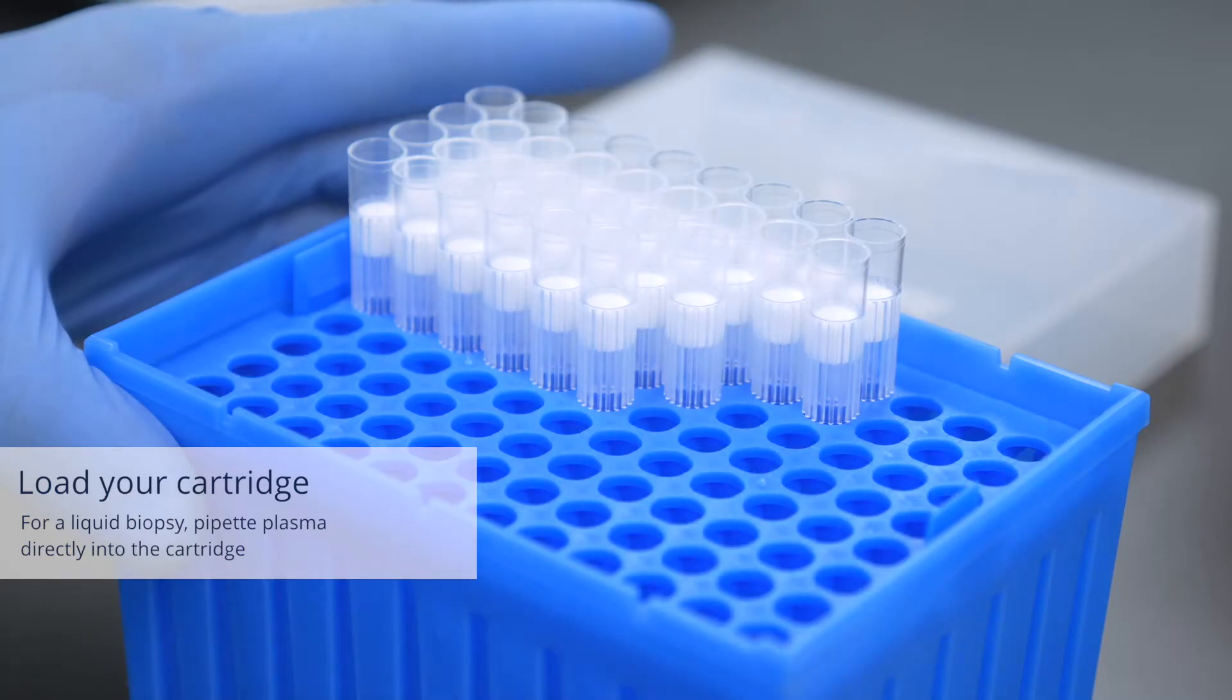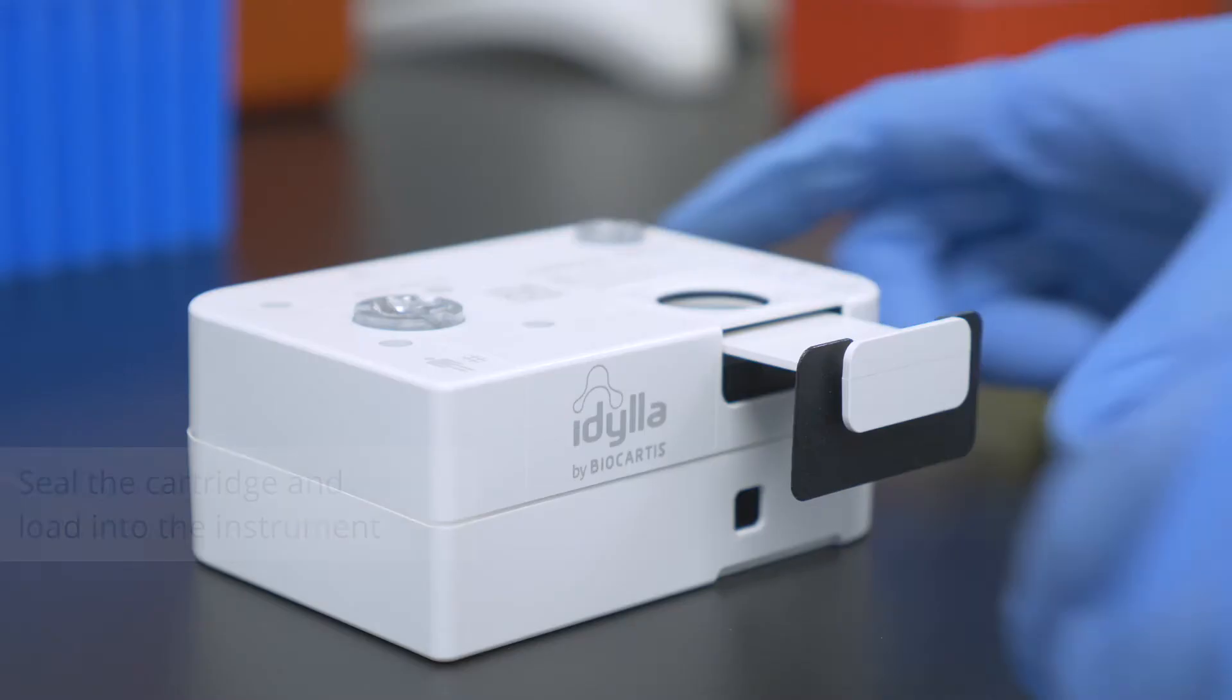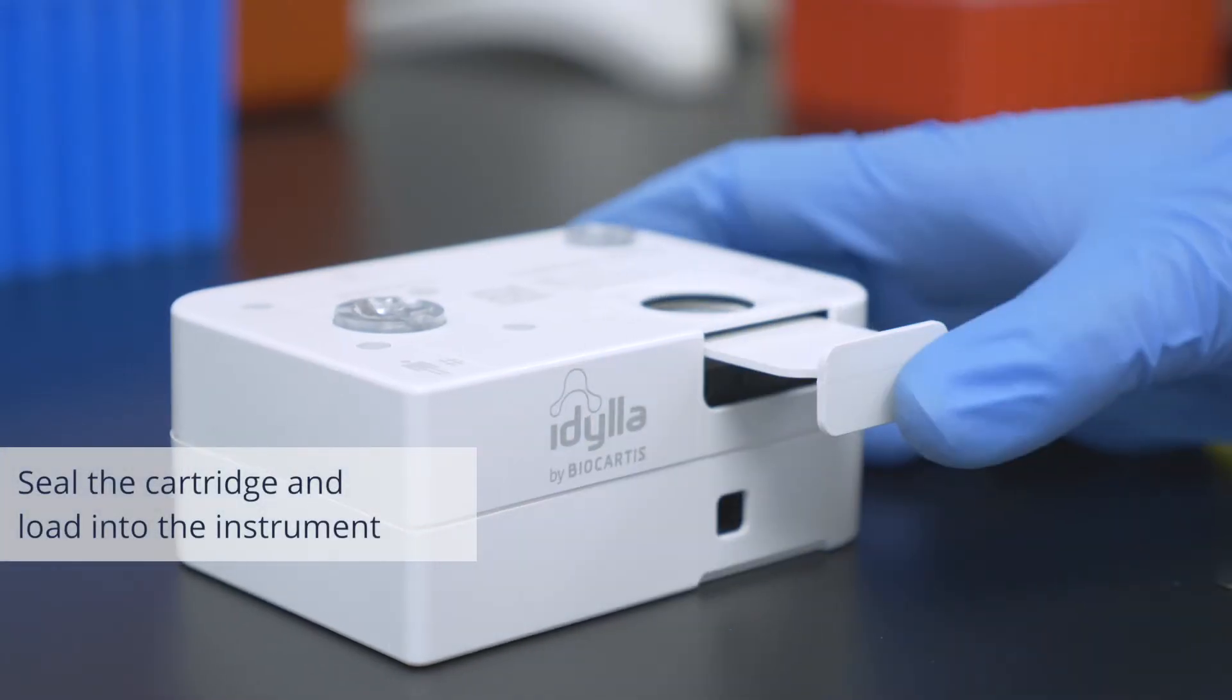For a liquid biopsy sample, pipette your plasma sample directly into the cartridge. Remove the protecting clip and seal the cartridge.